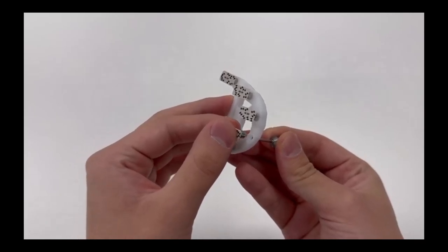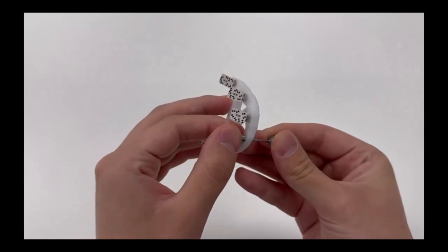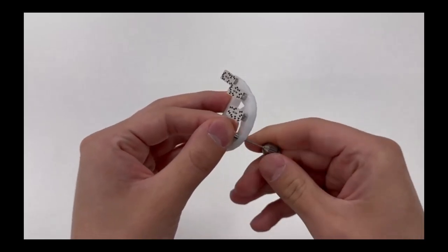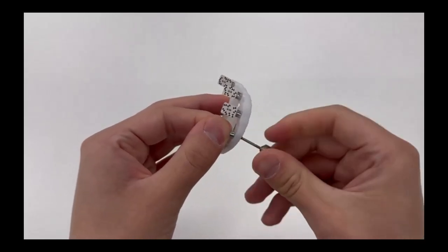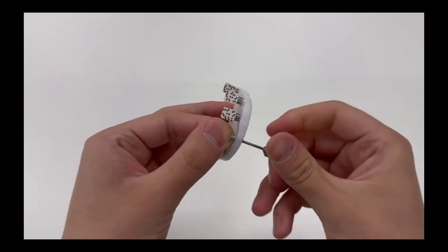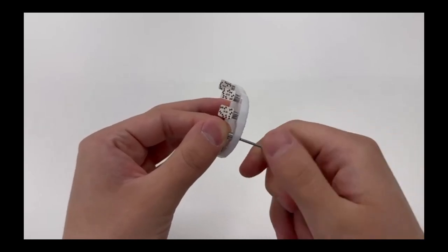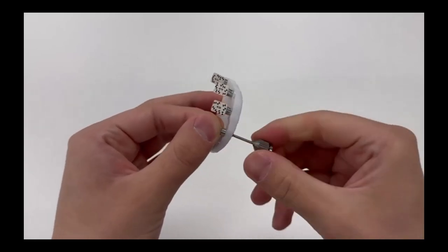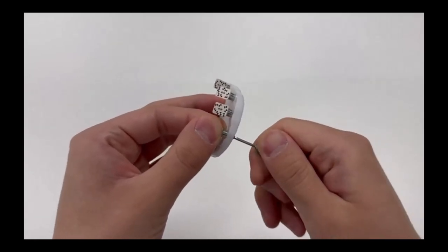You can then screw in inverse micromapper scan bodies into the multi-unit interface of your prosthesis. This particular example shows a bar prototype.